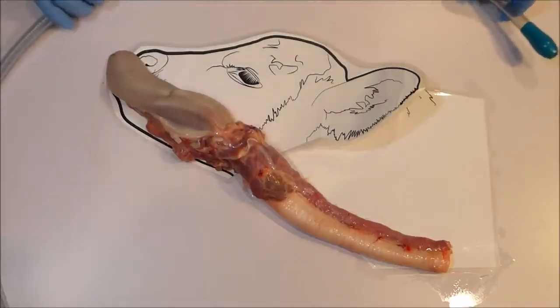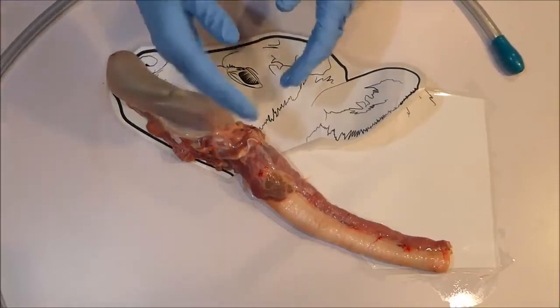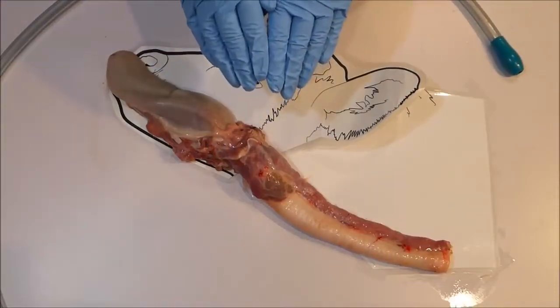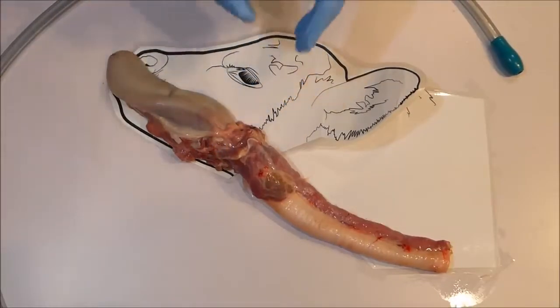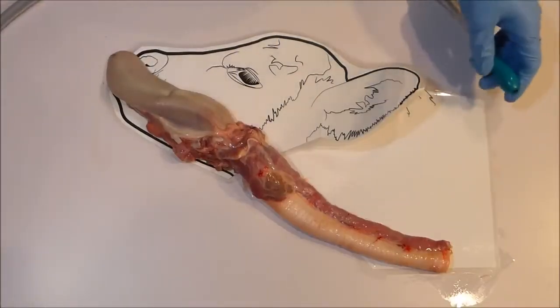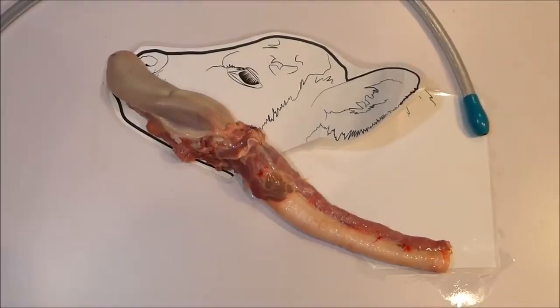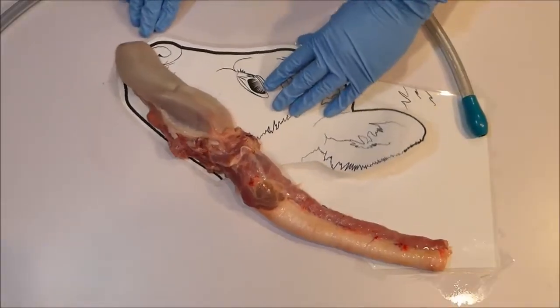Note, even if you are aiming down in this direction, the airway will automatically close to prevent the tube entering. And because of the size and shape of the tube tip, considerable force is still required to push a tube through the entrance into the airway. To avoid any chance of airway entry, never force a calf's nose upward.